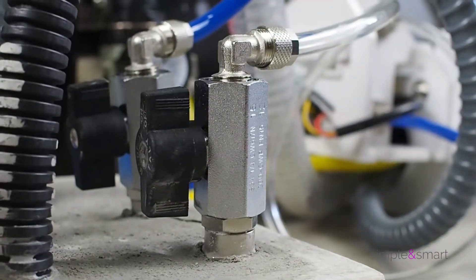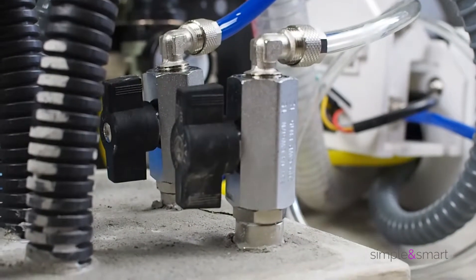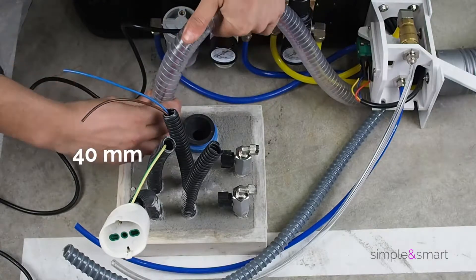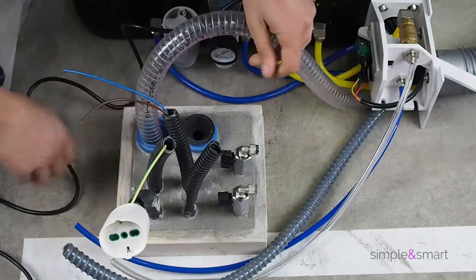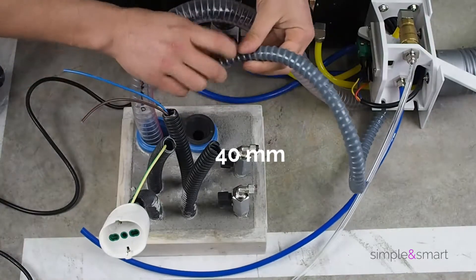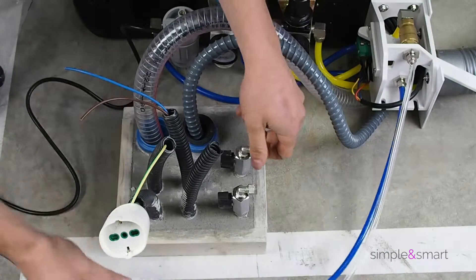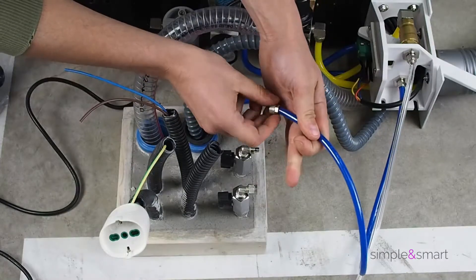Connect the suction tube in the suction pipe. Connect the drain tube in its drain pipe. Connect the 6x8 water tube in its connector.